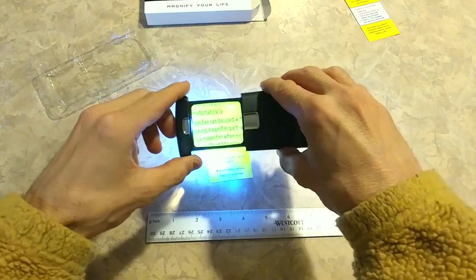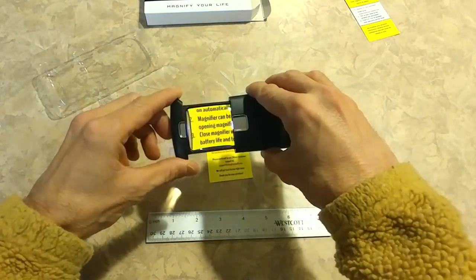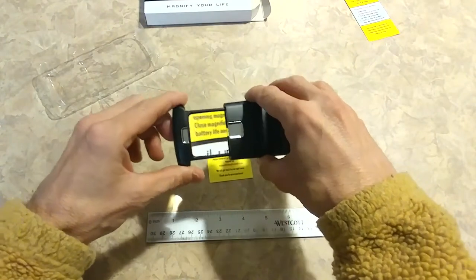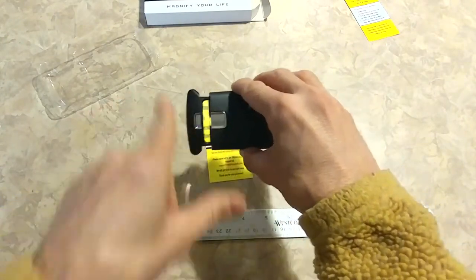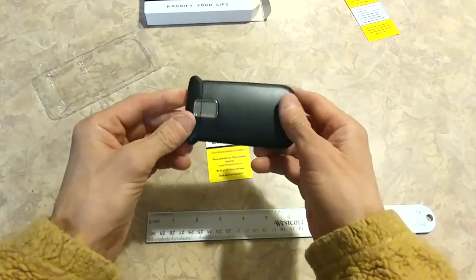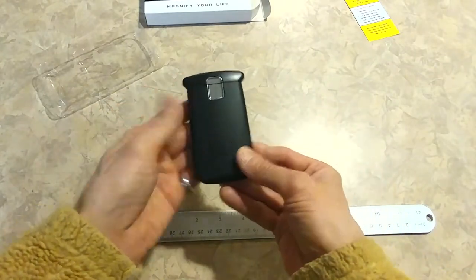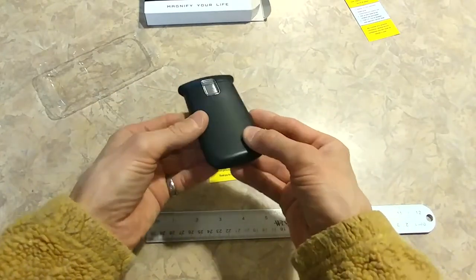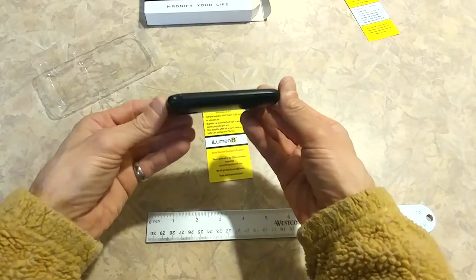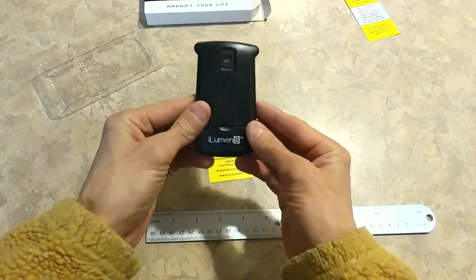That's one reason we always recommend, if you need a magnifier that you are going out with and you're limited in space, get one that has a rectangular lens — an aspheric rectangular lens such as this one — and you'll be able to see more and have a smaller device. Really an elegant look. You get so many compliments on this magnifier.